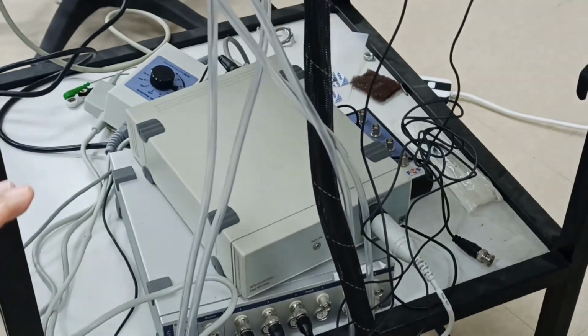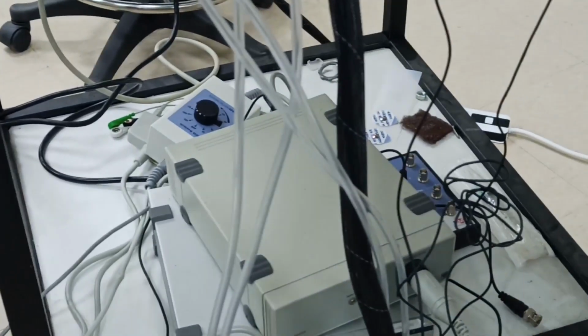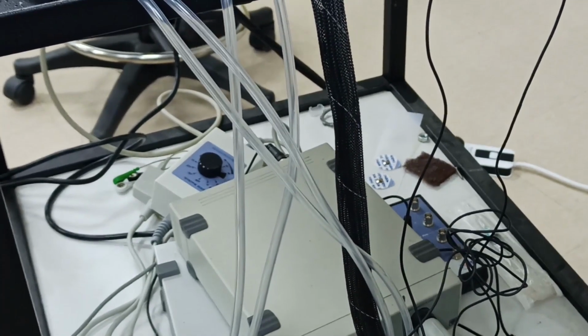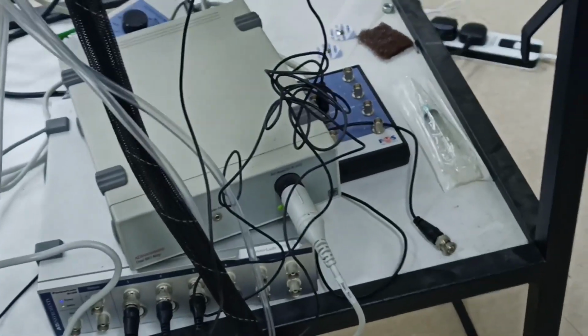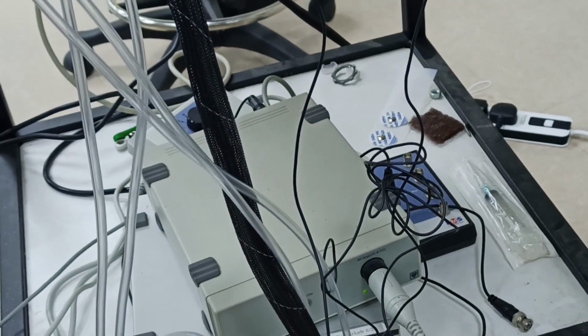What is the significance of the bioamplifier? It has a special safety mechanism inside it, so that the electrical current that is generated is isolated from the main currents. So it is a safety procedure, and that is an essential thing. You would see that there is a mark of a heart here. This is suitable for attaching to human beings for recording of heart activity.